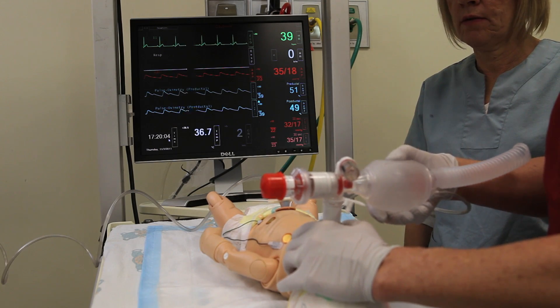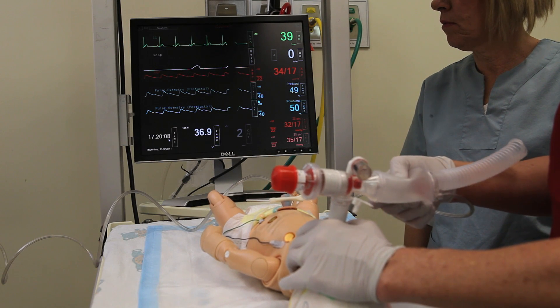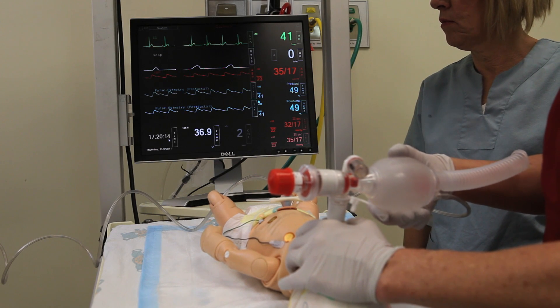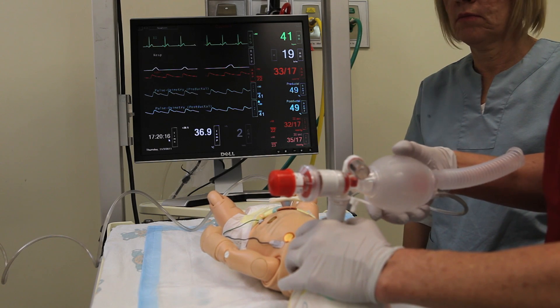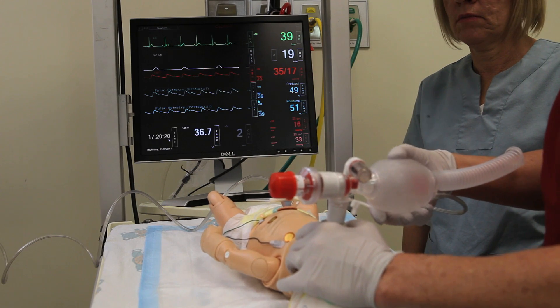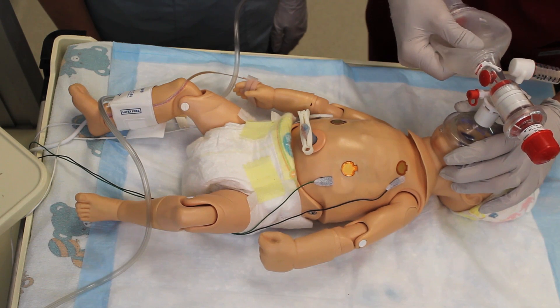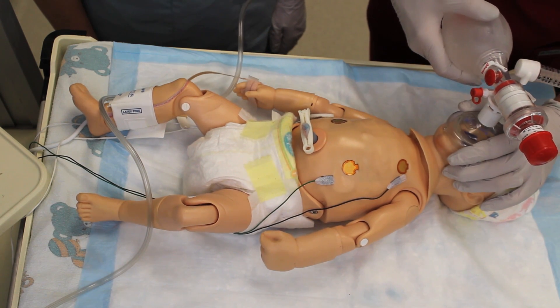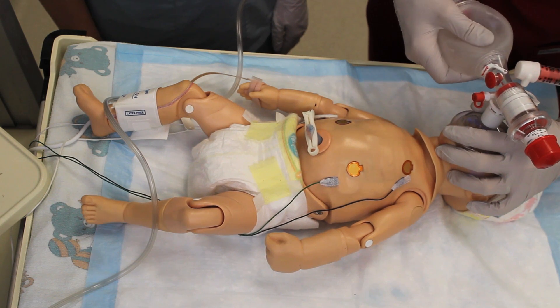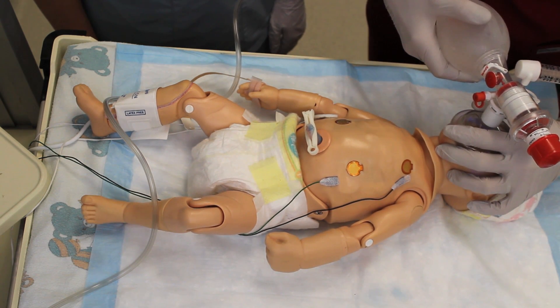When you bag the baby, if you're giving effective ventilations, you will see that conveyed on the cardiorespiratory monitor. The rate that you're bagging is going to be picked up, and you can see the number changing from zero as we give breaths. Head position can influence whether or not you get chest rise. If you're not successfully ventilating the baby, you have to reposition the head and even consider increasing your inflating pressure.